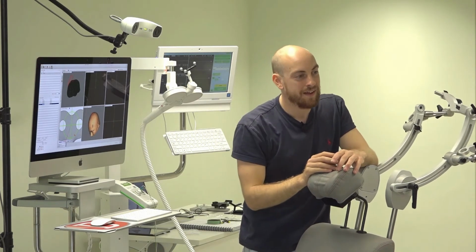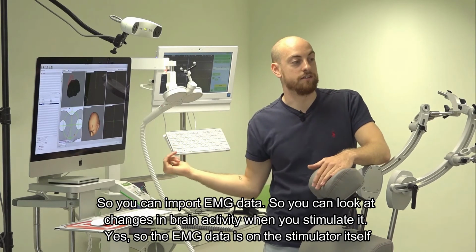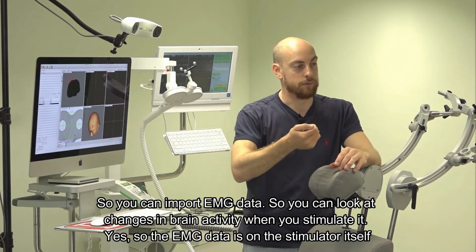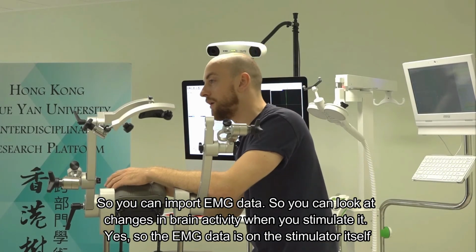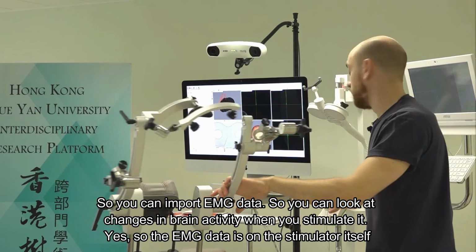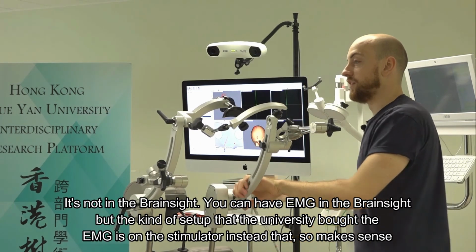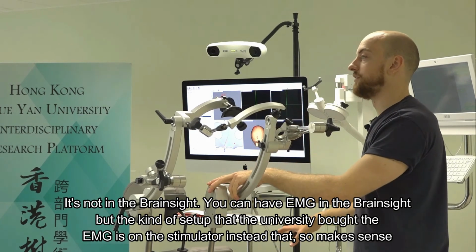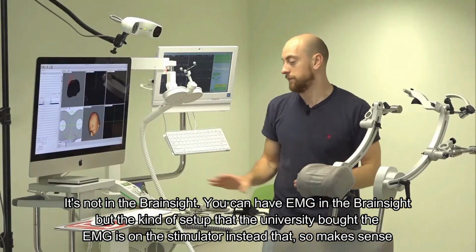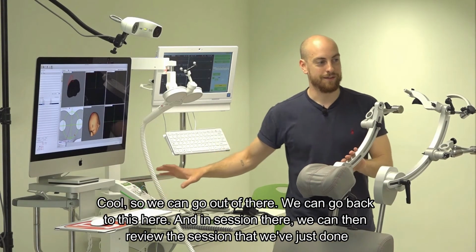So it means that it can, right? So you can import EMG data, so you can look at changes in brain activity when you stimulated. Yes. The EMG data is actually not included in this tool, or is it? So the EMG data is on the stimulator itself. It's not in the BrainSight. You can have EMG in the BrainSight, but with the kind of setup that the university's bought, the EMG is on the stimulator instead. If that makes sense. Cool.